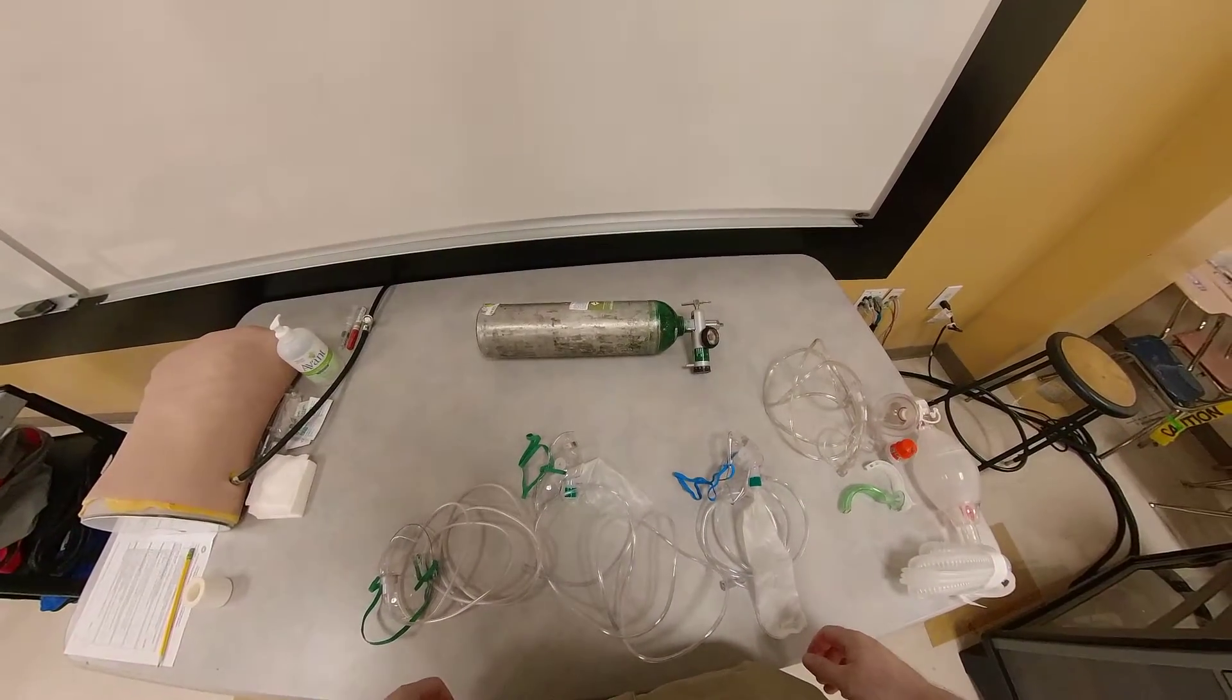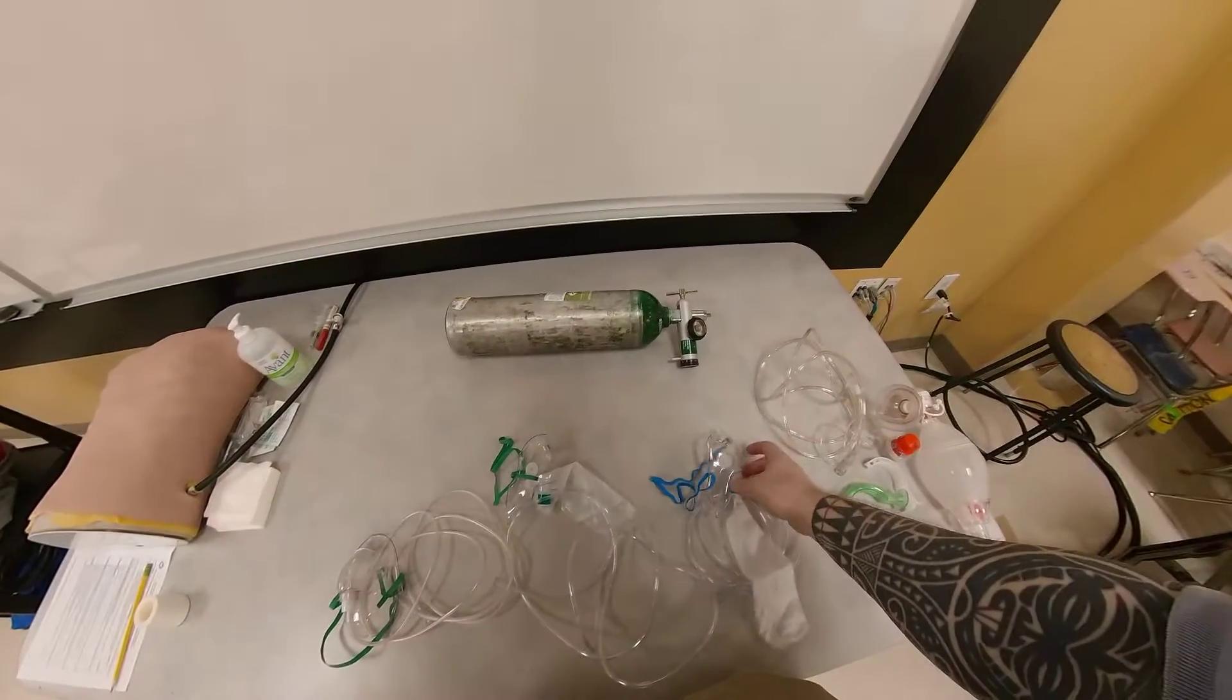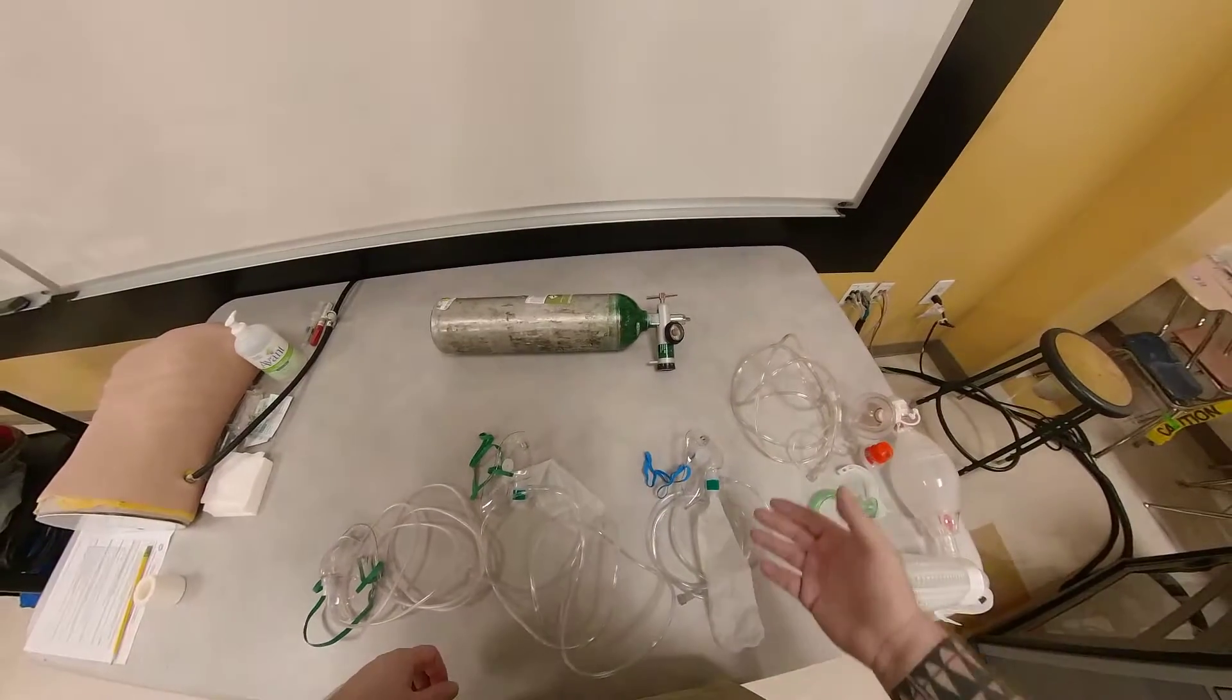Hello, my name is Nikolai Yusupov, and in this video I'd like to show you what a true non-rebreather mask looks like and the functions that it has.